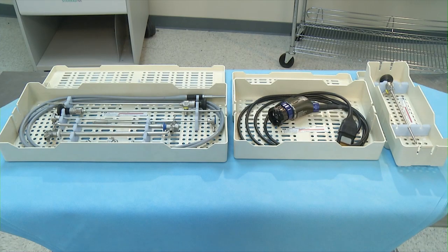When using medical-grade compressed air, it is important that your staff refers to the medical device manufacturer's IFUs for the maximum air pressure that can be used to assist with drying lumens. Another important piece of advice is to consider the presence of moisture beyond just the instrument you are drying, and to make sure that the trays, closed rigid containers, and other accessories are completely dry.